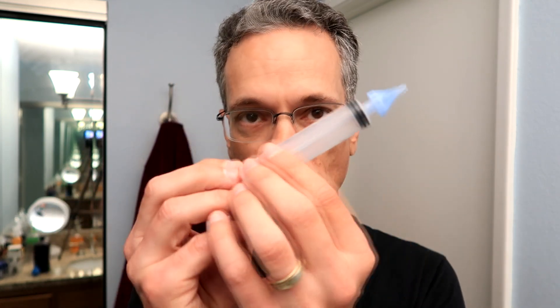You're going to need a couple things. The first is a little bulb — I'll put all these links down below, you can get these things on Amazon. You'll also need a little jar, some nice clean warm water, some hydrogen peroxide, and one of these little squirters. I'll show you exactly how it works.